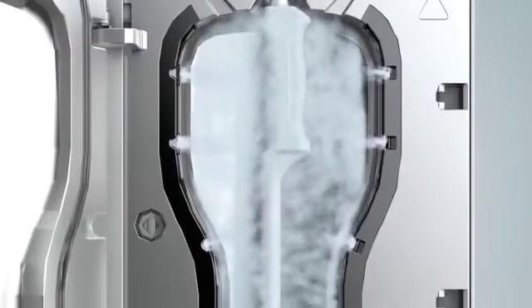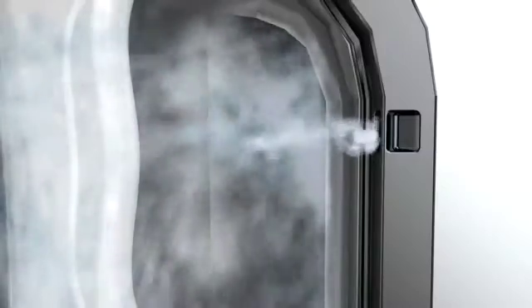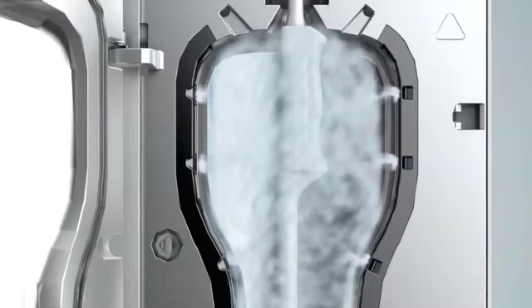The mist swirls up inside the device and enters the decontamination chamber via side ports, gently covering the entire surface of the probe.